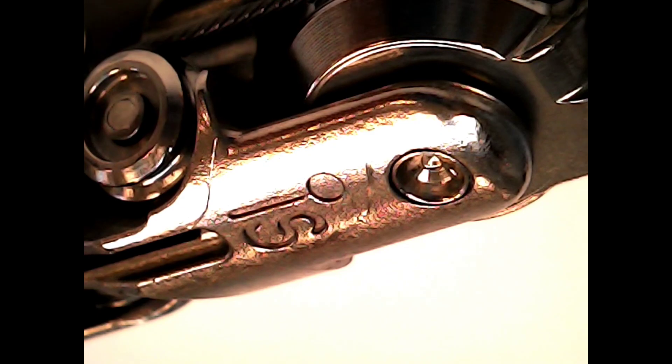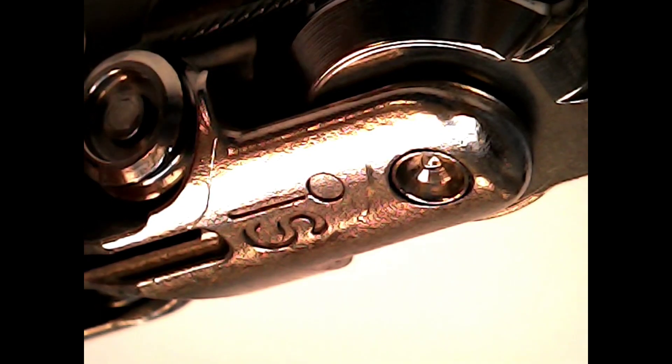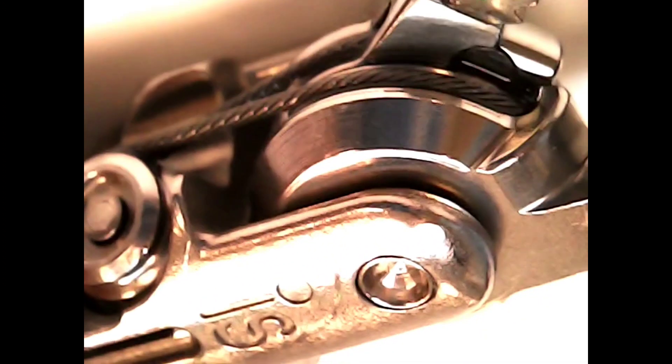You see this zoom that I have now? This is extremely over-amplified. You don't need this much magnification because the more you magnify, the more you're going to find. But this is the spots you want to look at.